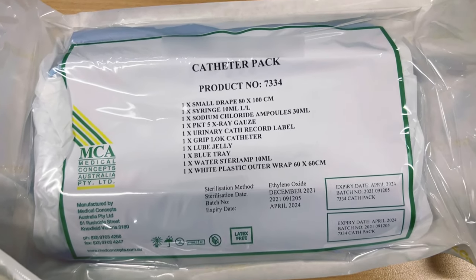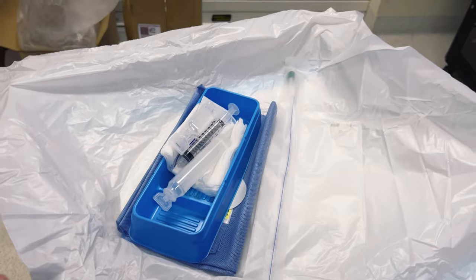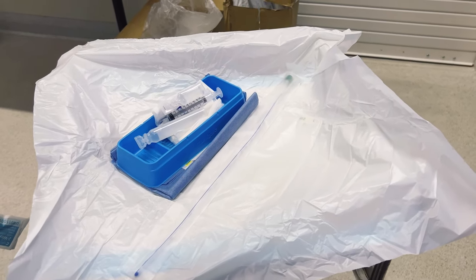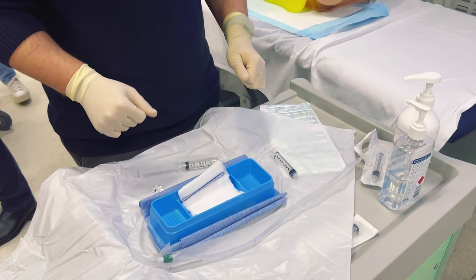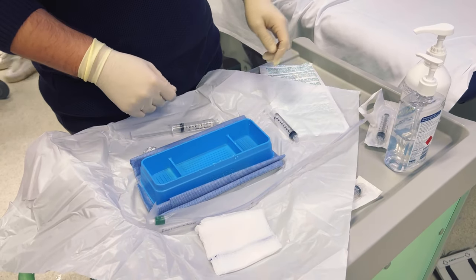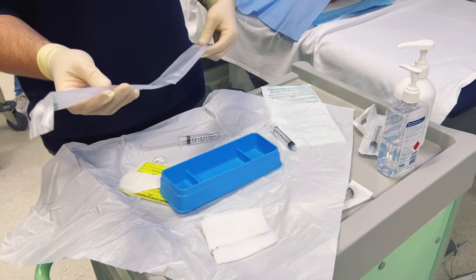In hospitals, there is often a catheter kit available, minus the catheter itself. This tray basically has everything you need: cleaning utensils, gel, water, saline, a tray, some gauze, and syringes. I got to practice using a sterile technique I learned in my skin cancer clinic days, and managed to fit the long catheter on there too without contamination.